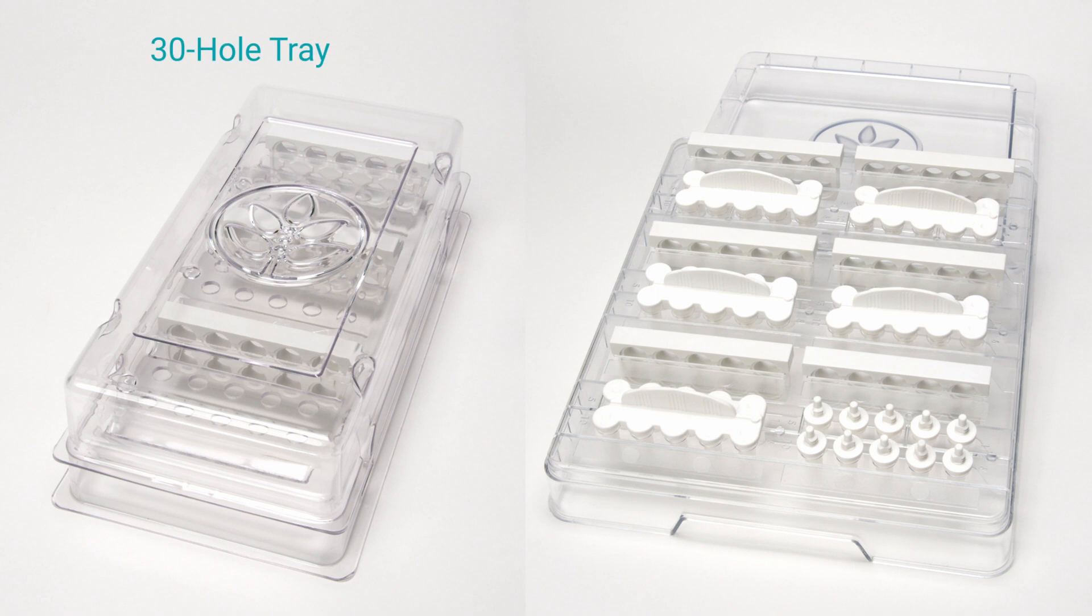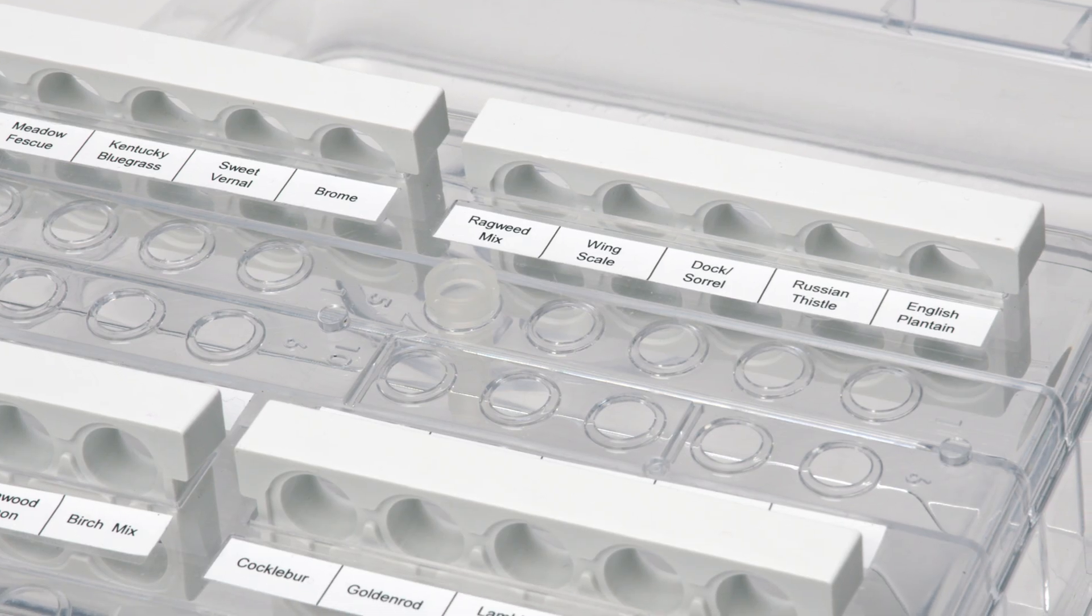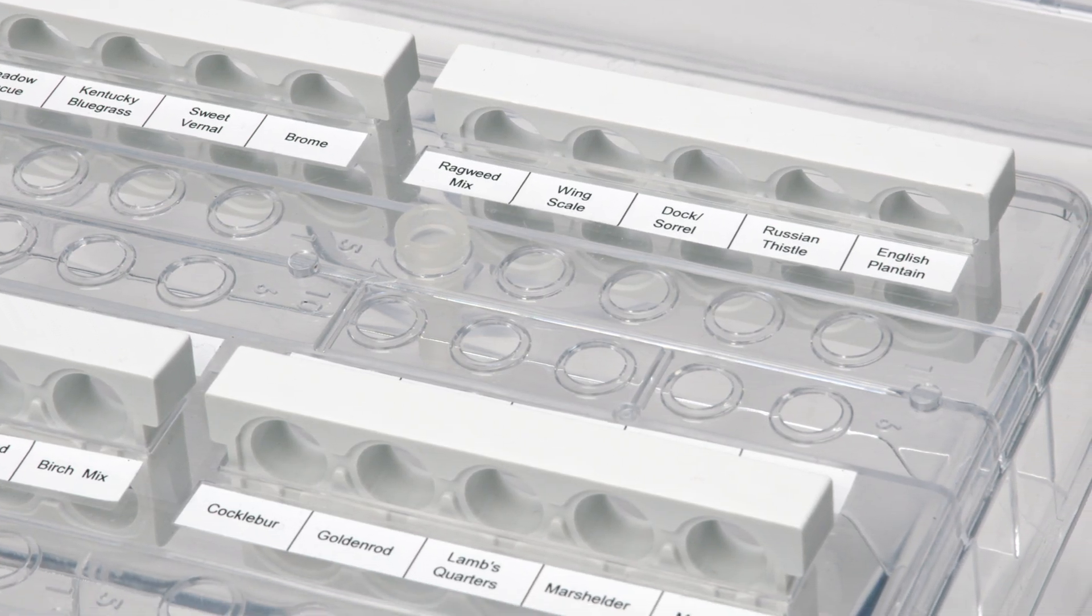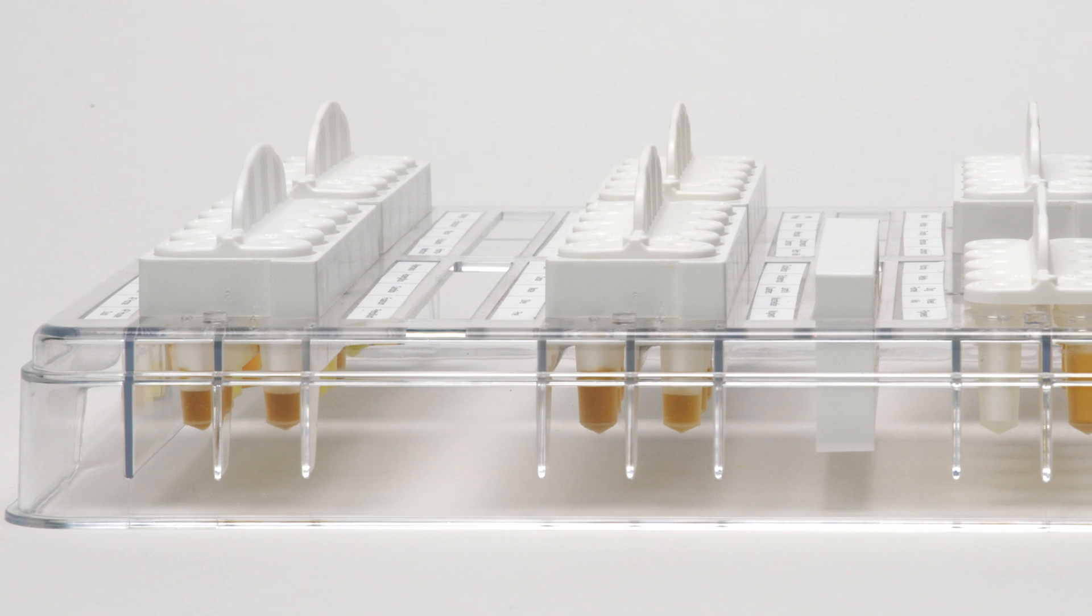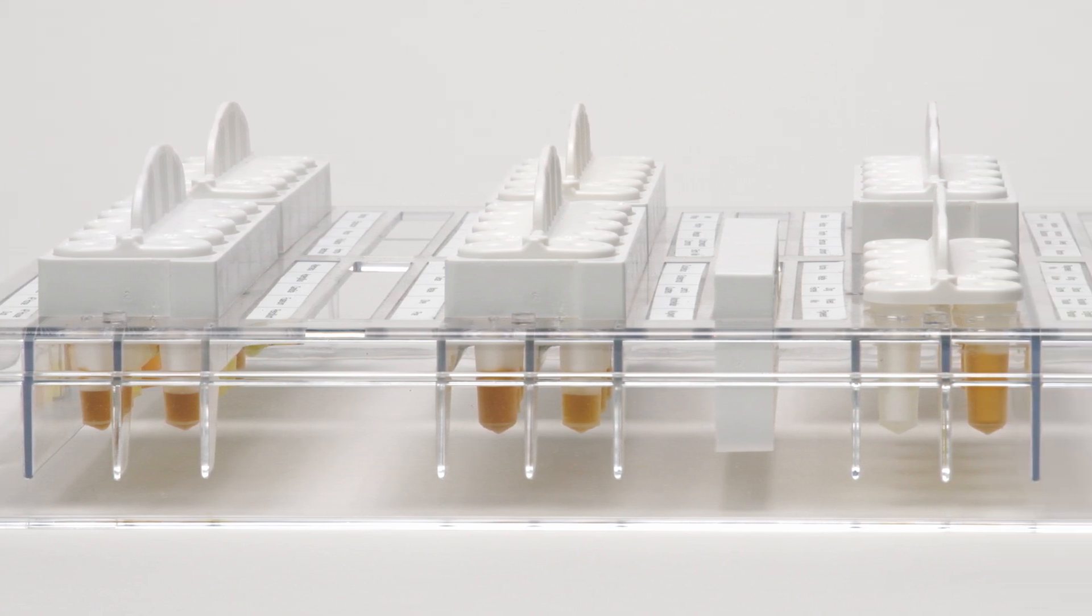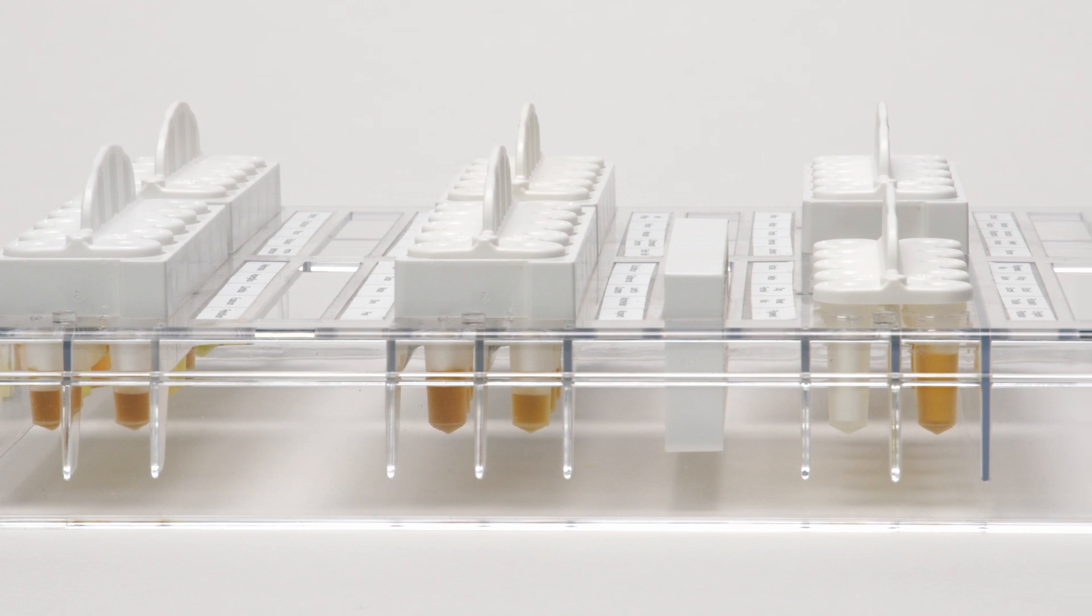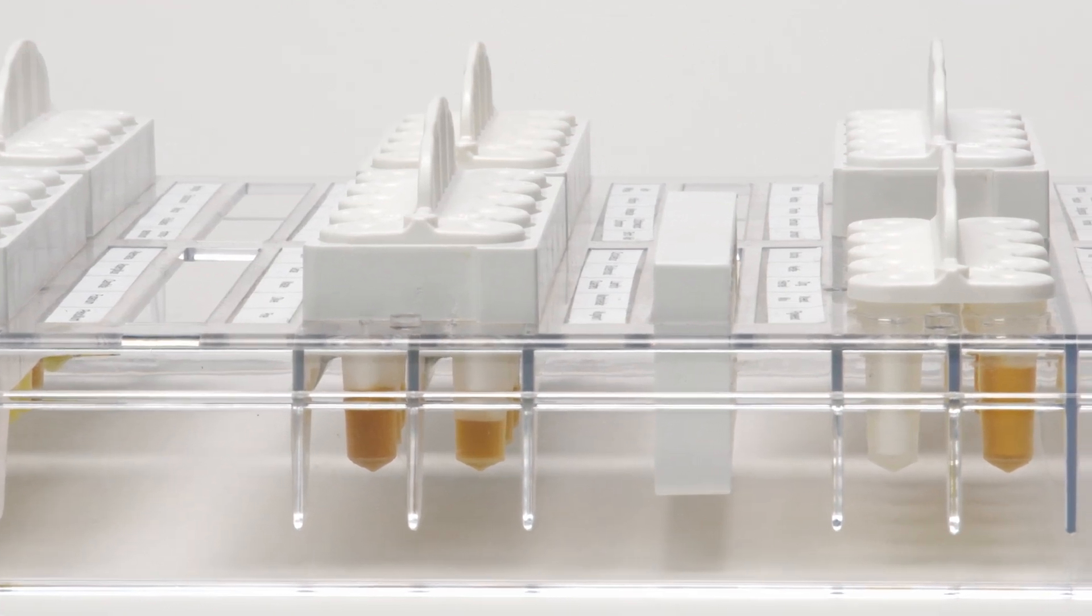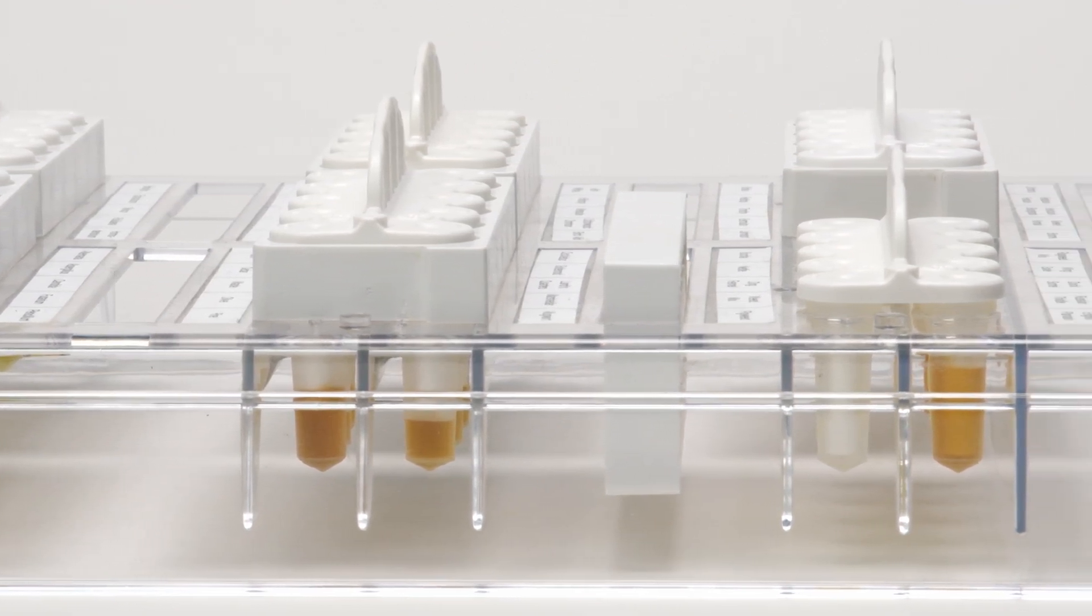We offer 30 hole and 60 hole stackable trays to meet your practice needs. Complementary tray labels can be customized to your specific panel. Our trays and devices are uniquely designed to protect each antigen from foreign material, cross-contamination and evaporation. And the translucent design allows for easy inspection of antigen levels.